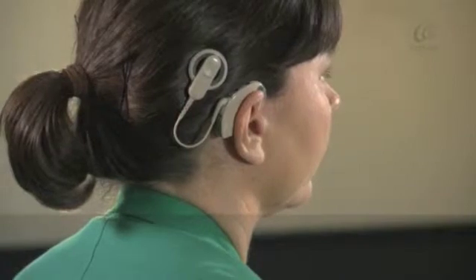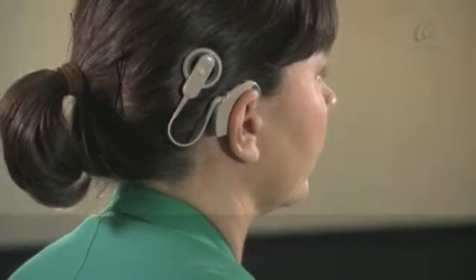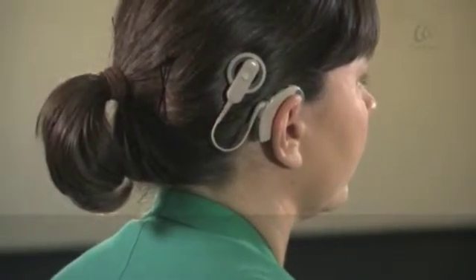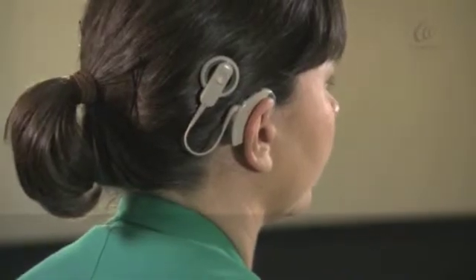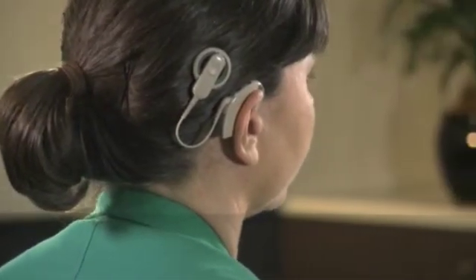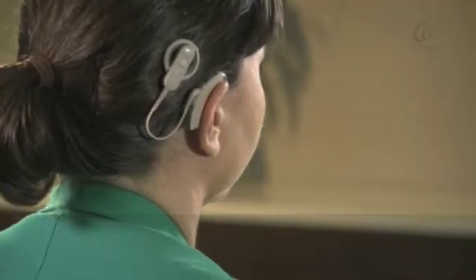Auto telecoil detects the telecoil signal automatically whenever you use a telecoil compatible phone or when you are in range of a hearing loop.